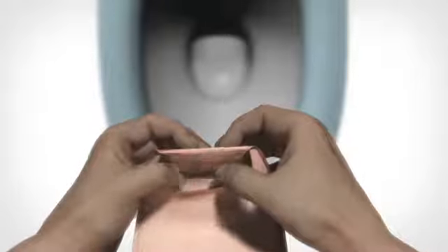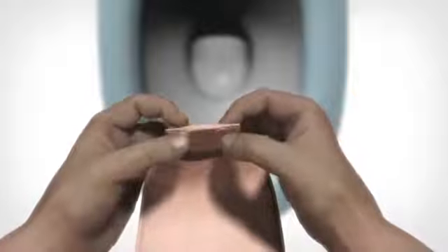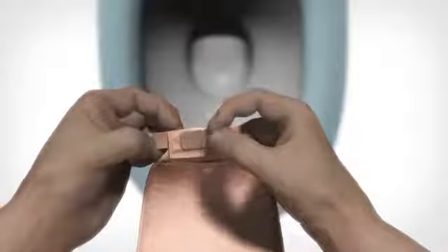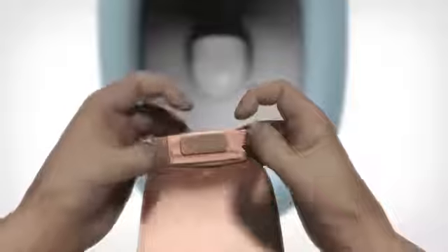To open the outlet, first release the outlet from the hideaway pocket. Take hold of the end of the velcro ears. Lift both velcro ears off the velcro pad. Unfold the outlet twice. Do this in an upwards position to control the emptying of the bag.